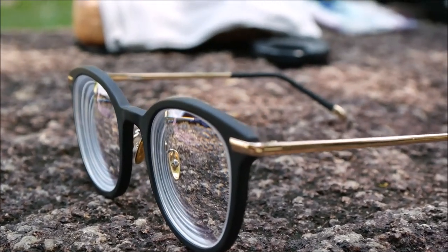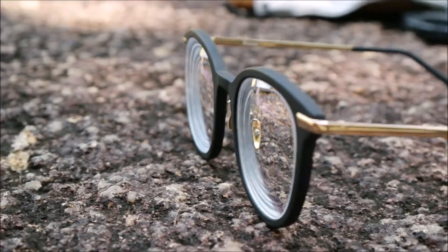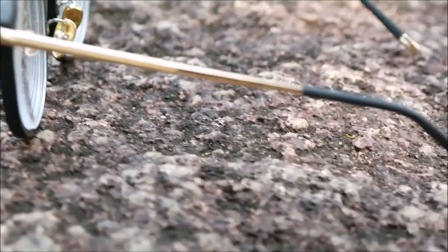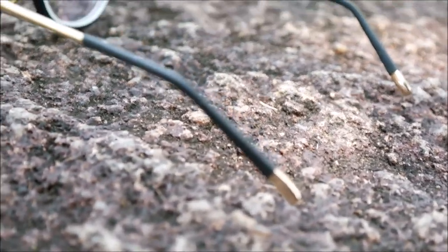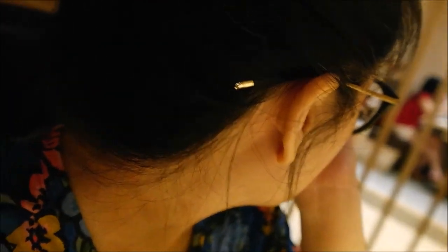I like how the gold detail at the front and along most part of the temple is carried through to the end tip so that when you tie up your hair or scrunch it into a messy bun the little gold bit can peek through from behind like this.